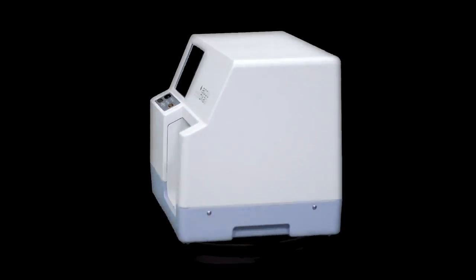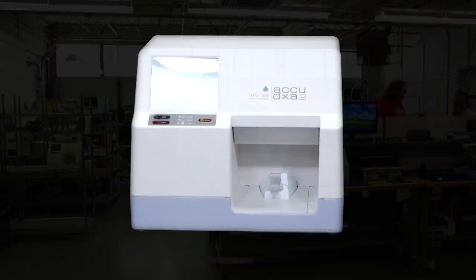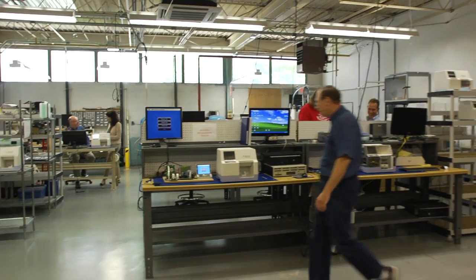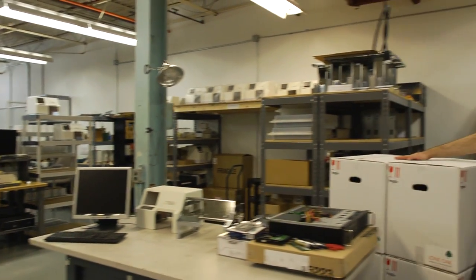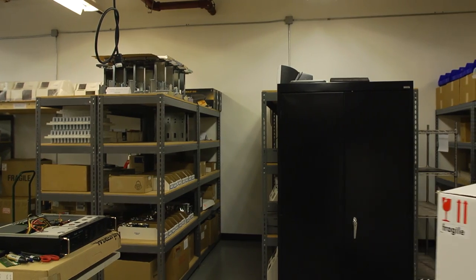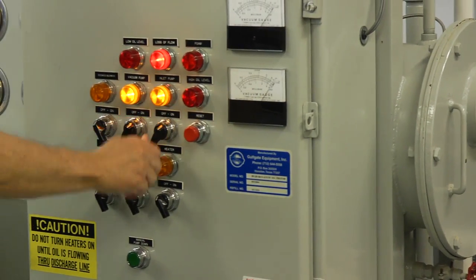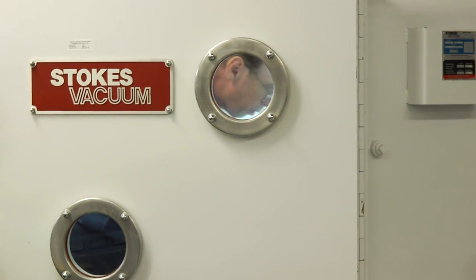Of paramount importance is the peace of mind that physicians will have knowing that they're providing their patients with the best of early osteoporosis detection. Introducing the AcuDexa 2 bone density screening device from Lone Oak Medical Technologies. Lone Oak Medical Technologies confidently delivers a quality machine and their staff is readily available for any service needs. The AcuDexa 2 is American-made and comes with a complete marketing package for presenting in your office.